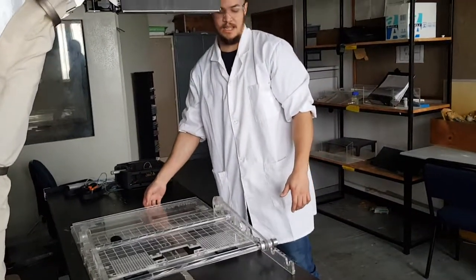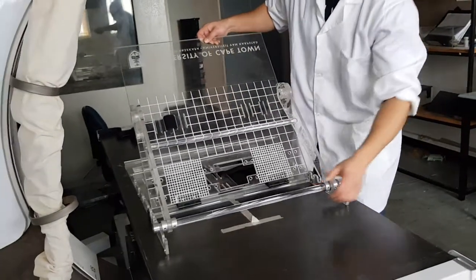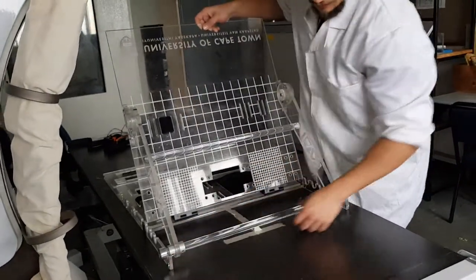Thereafter, you take your low leg support panel and slide the rods forward until they fall into their slots.